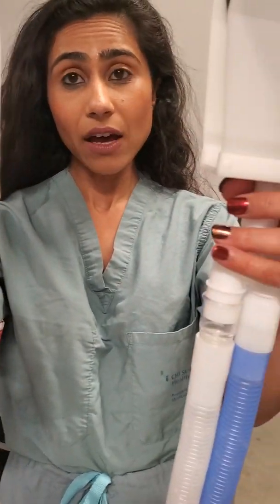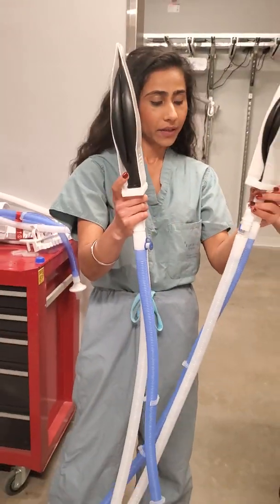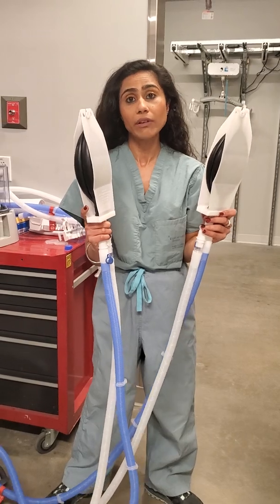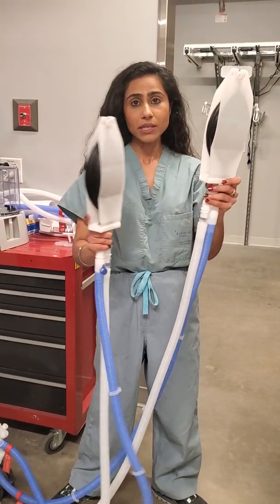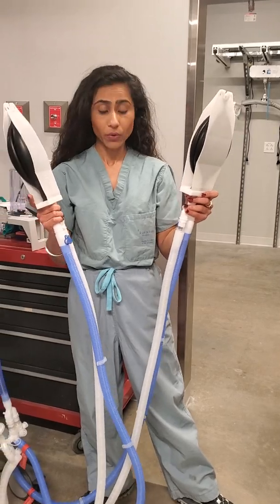Can you do without a one-way valve? We did that experiment and when we took away the one-way valves, we found that there was backflow from one lung to another. So yes, you do need the one-way valves.